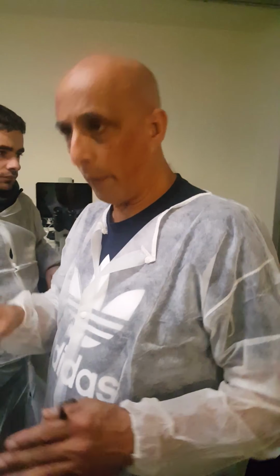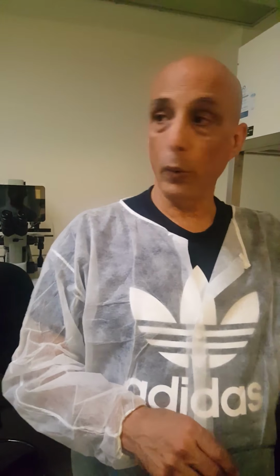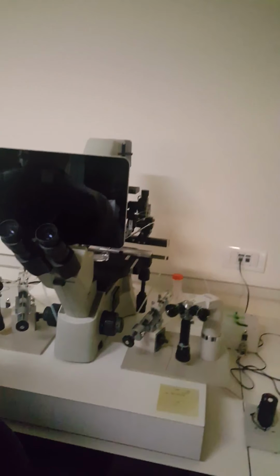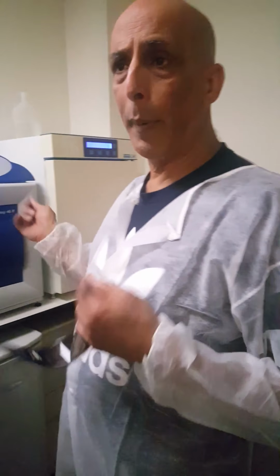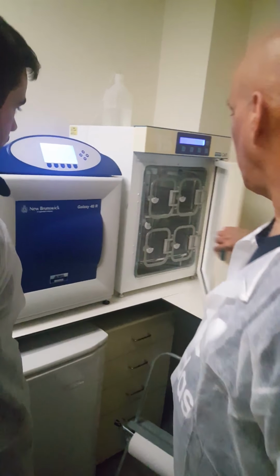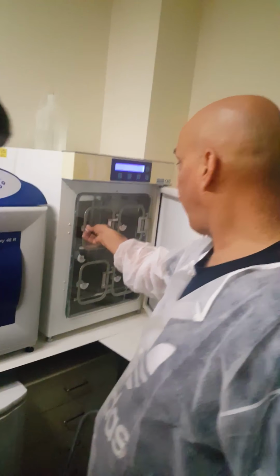We had a problem with it, so I decided to do this system. And I knew because this incubator has a record of the openings. Once I found we had a problem, I figured out that every 10 minutes people opened the incubator, and it's impossible. So another system that we have here, we have 1 incubator, but we have 4 doors.